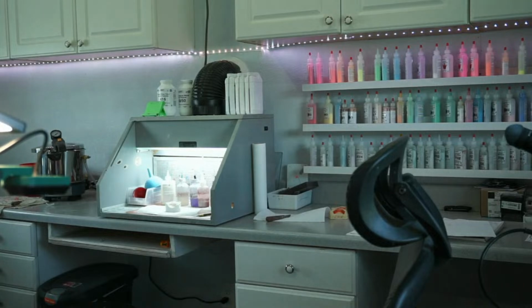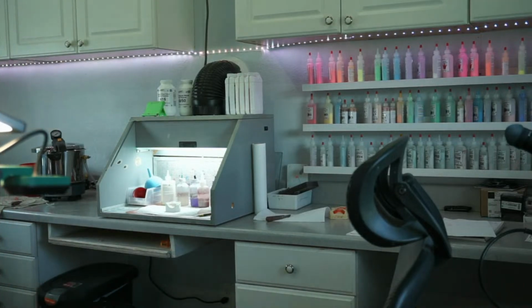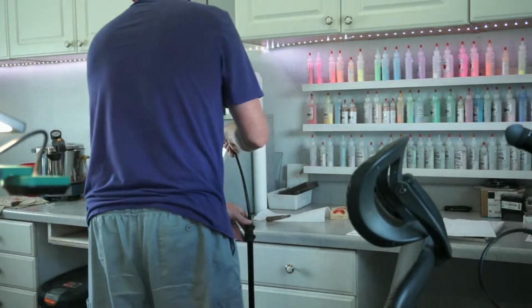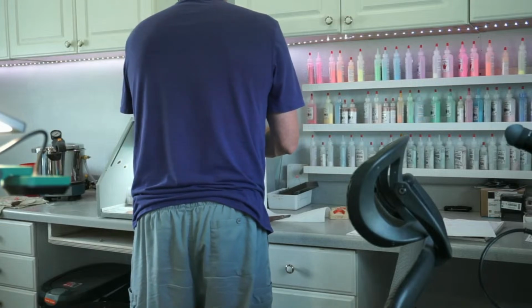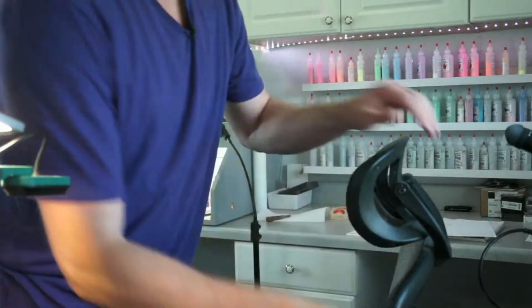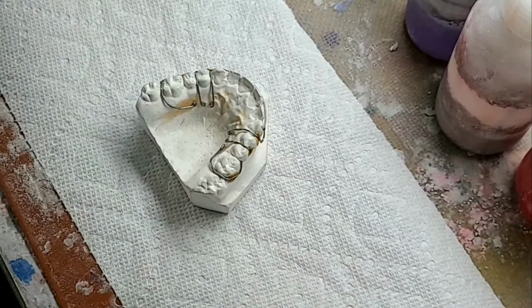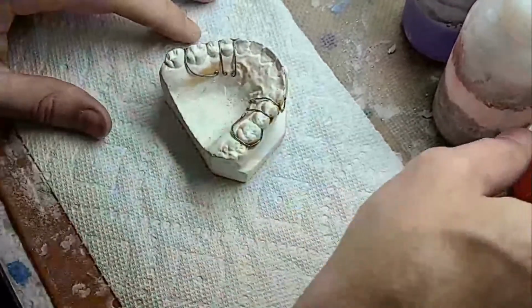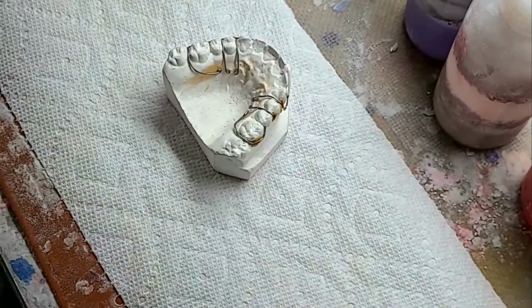So let me get my wireless camera here. Hopefully it doesn't spaz out on me. All right, let's sprinkle this. It is this one. All right, I don't have my name. Let me show you that now that I've blocked this.